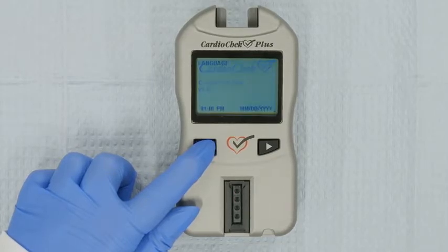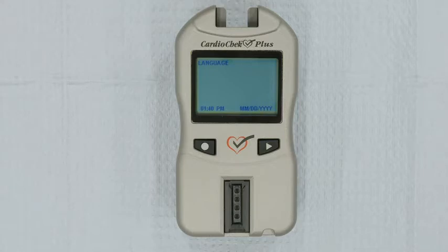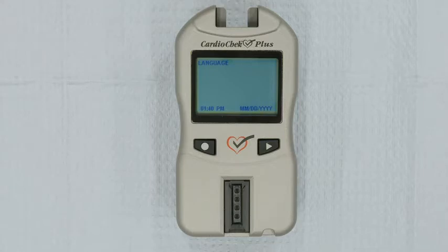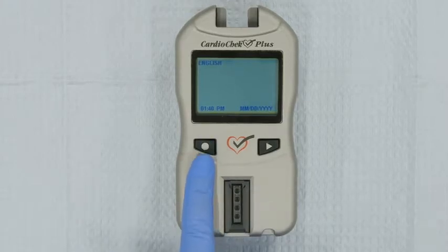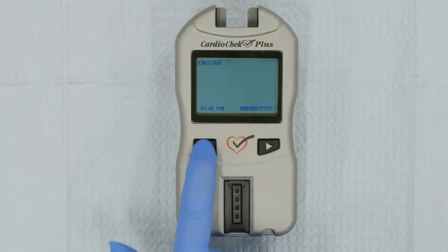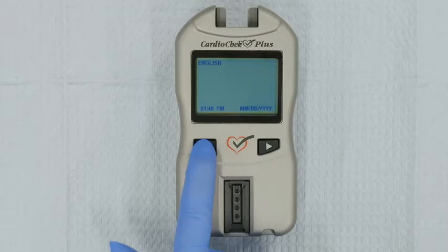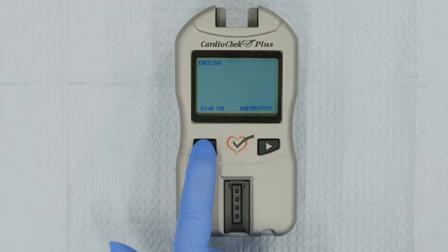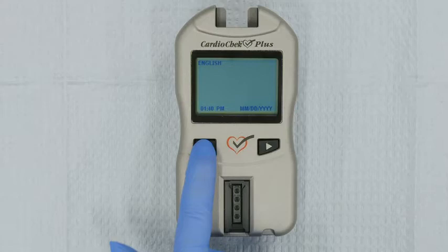Turn on the analyzer by pressing either the Next or Enter button. The screen will read Language. Press Enter. English will appear. Press Enter to set the analyzer's language to English. If you'd like to select a different language, press Next until you find the language you want, then press Enter.